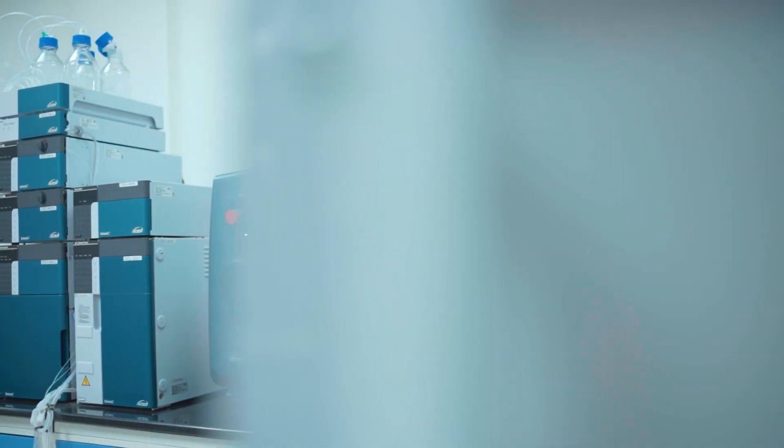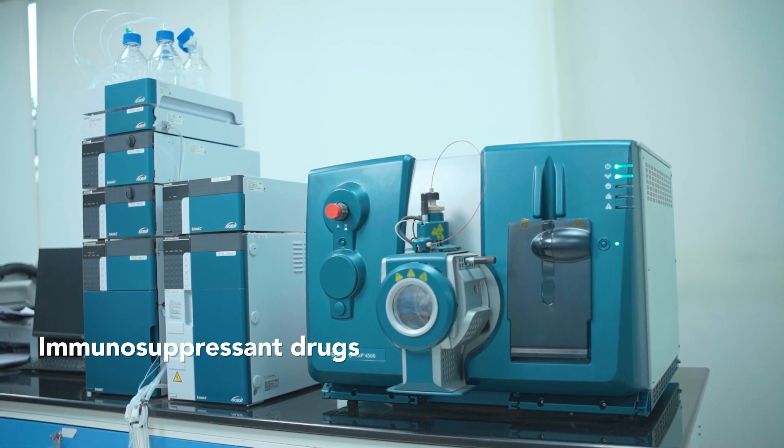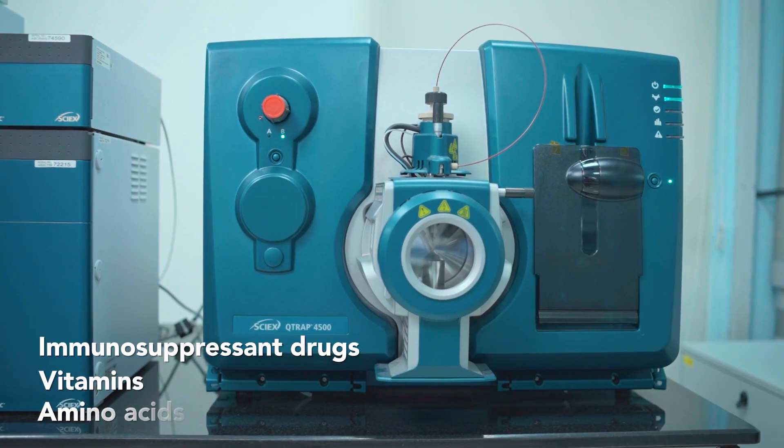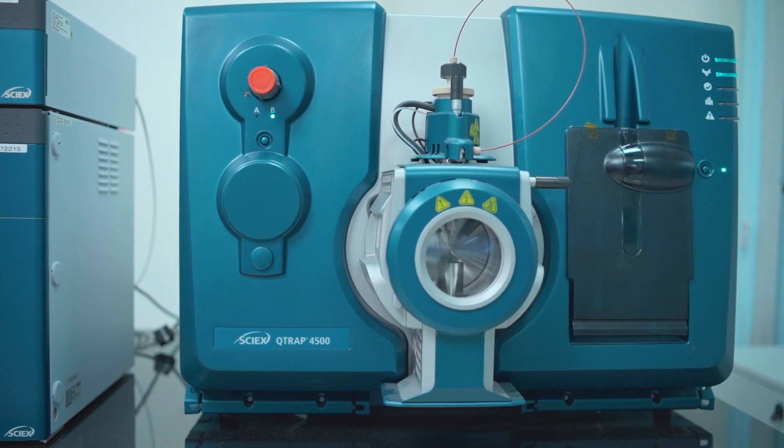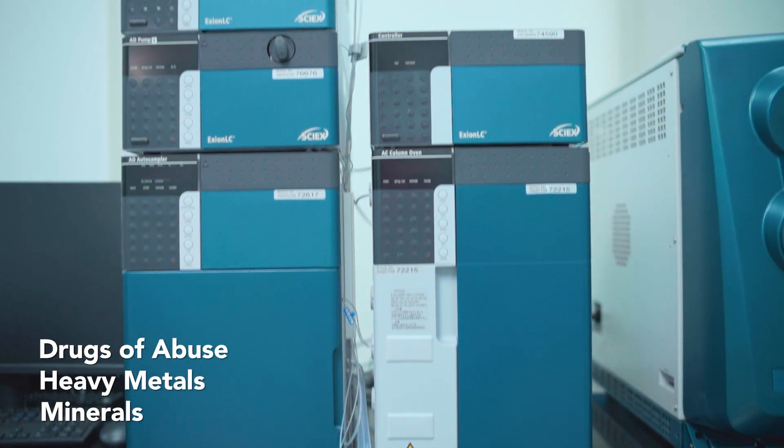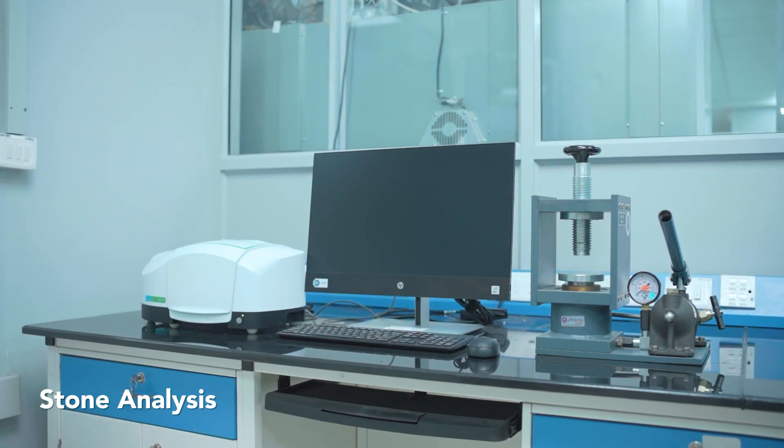LC-MS platform allows us to perform complex testing including wide range of immunosuppressant drugs, vitamins, and amino acids. We also offer qualitative and quantitative testing for drugs of abuse, heavy metals, minerals, and stone analysis.